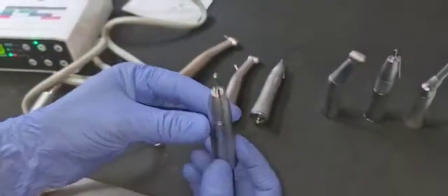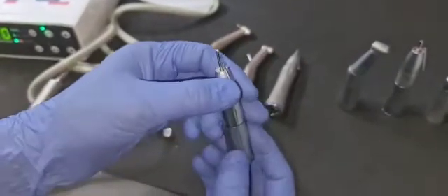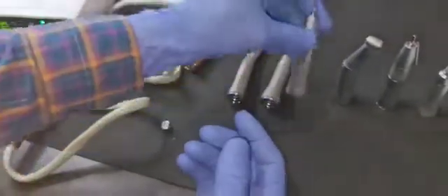This is a straight normal handpiece, surgical handpiece with inner and external water, without fiber optic.